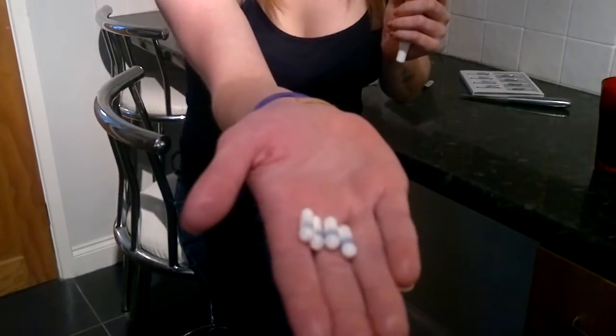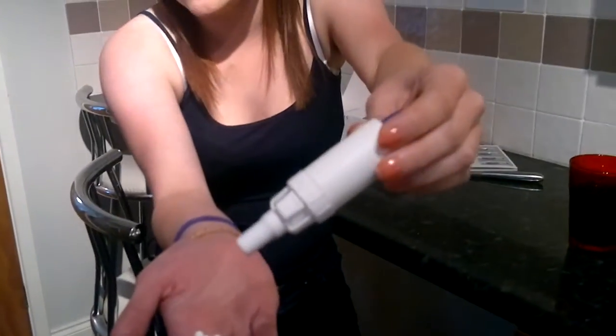Hi all! I'm just going to show you how to do my TOBI Podhaler because I've had it a while now and I've kept saying about doing it but I haven't. So you've just got four capsules and your little pod inhaler.